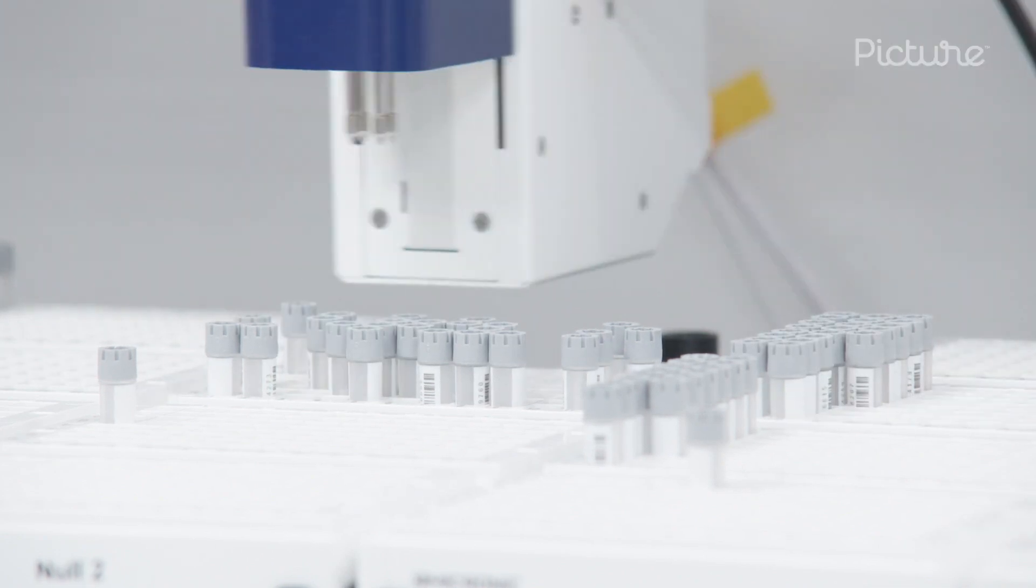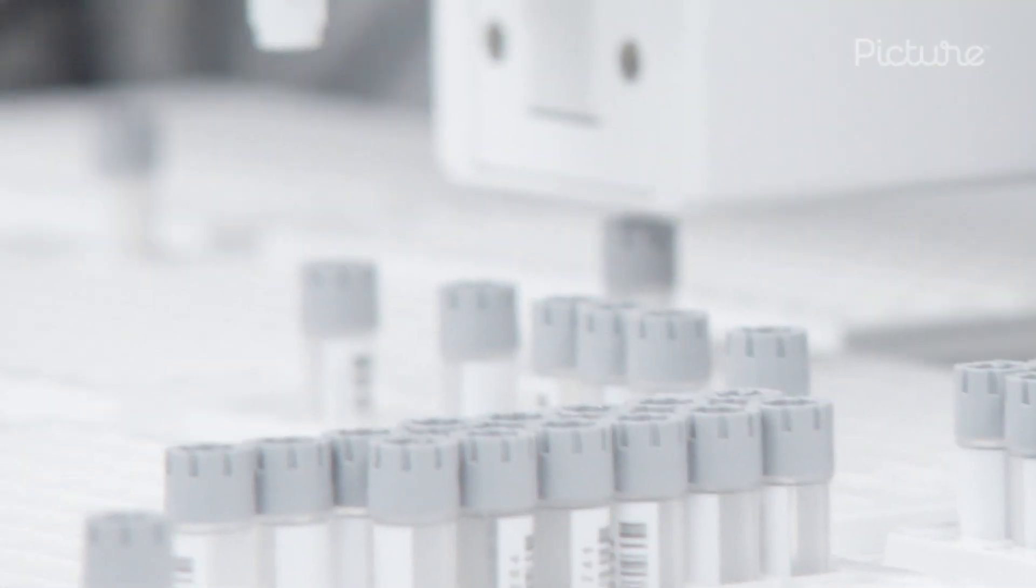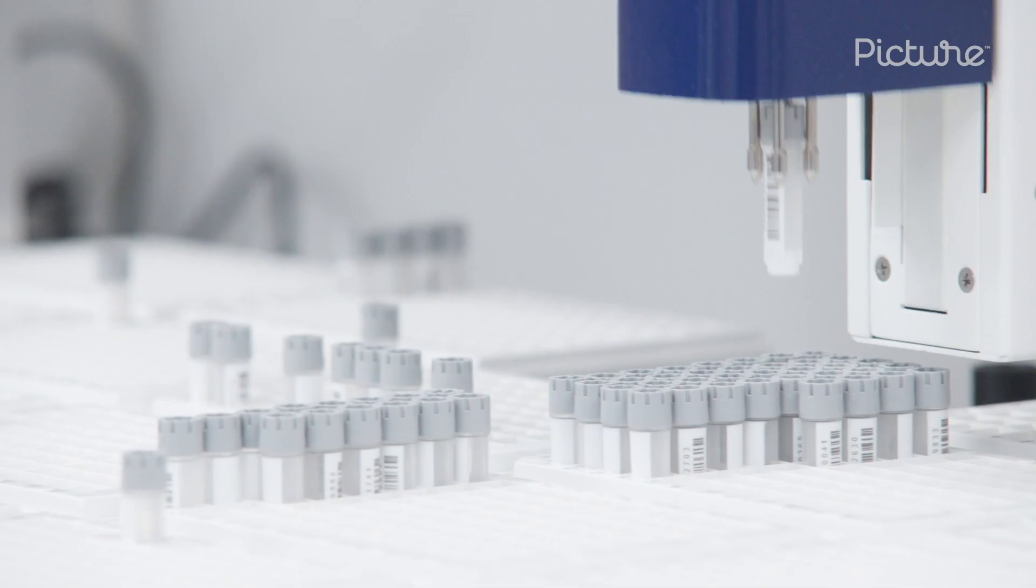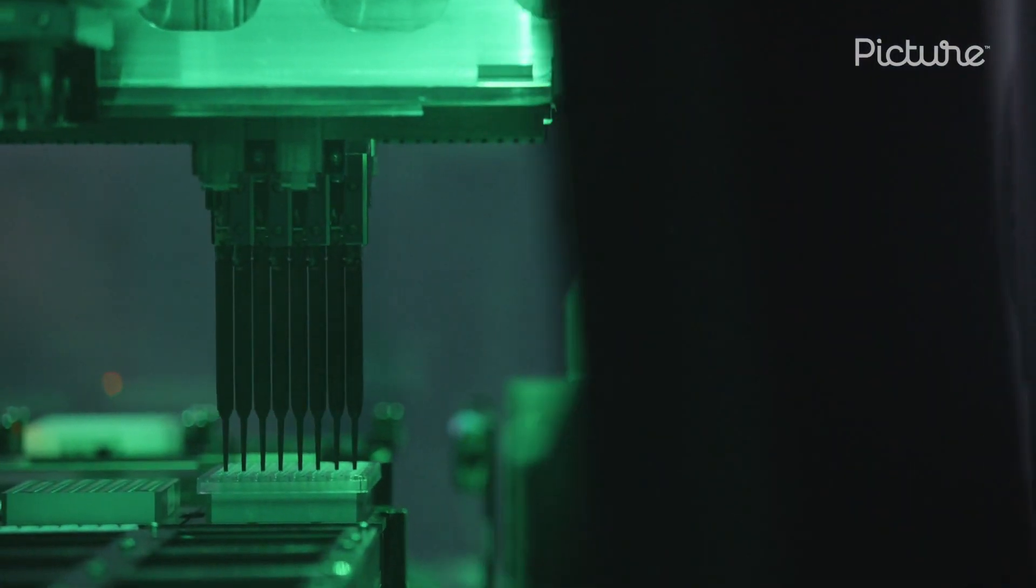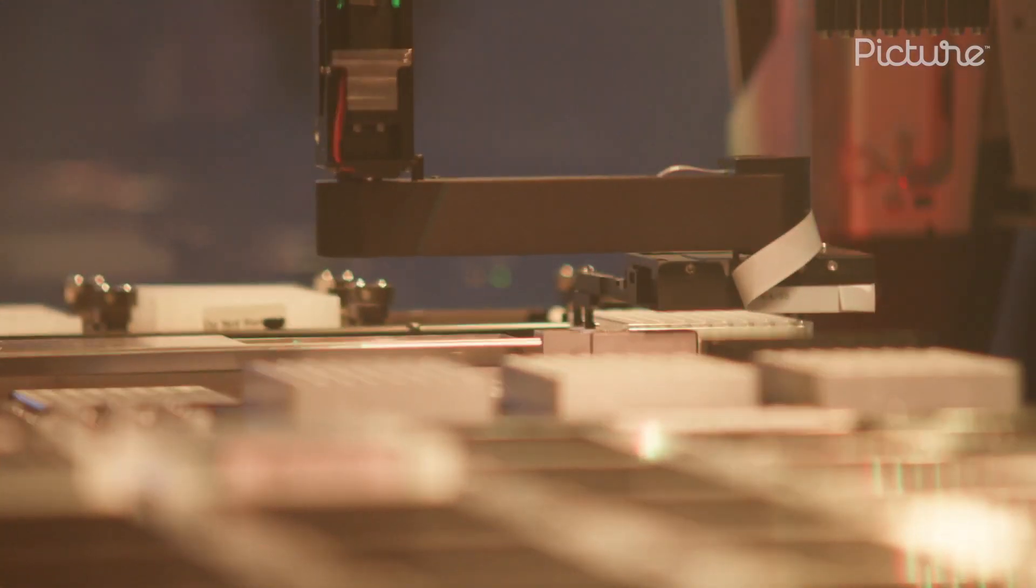Advances in molecular biology over the past decade have revolutionized the DNA testing world. Today, our robotic instruments can process hundreds of samples at a time with speed and accuracy.